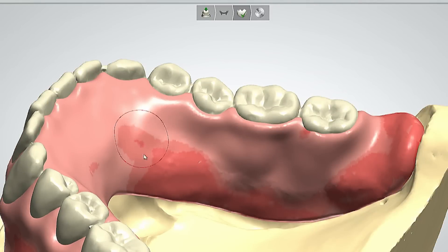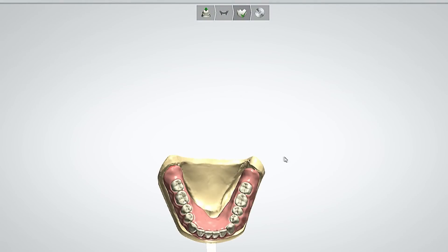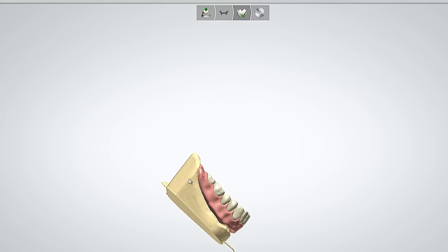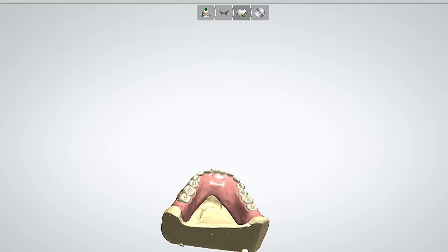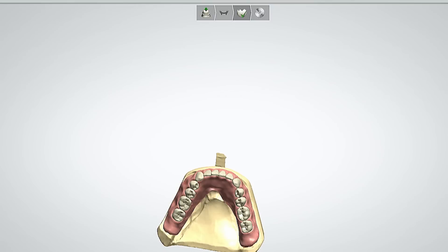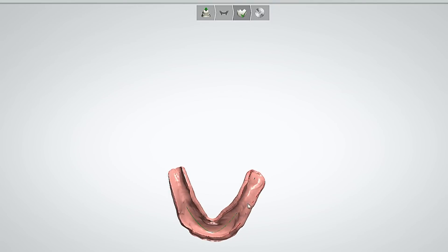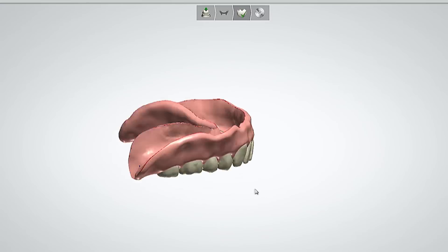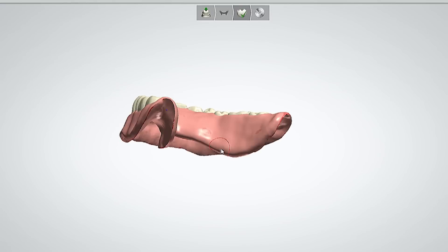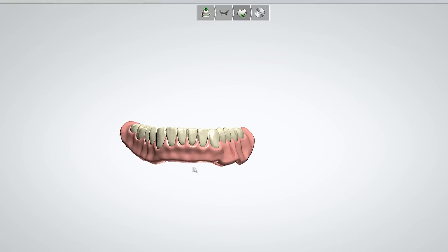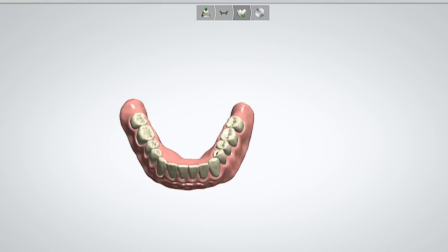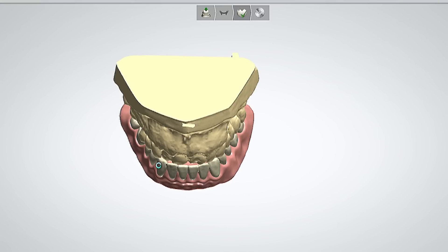Once the festooning is done and the denture teeth are set, the technician can process the denture. There are a couple of different ways of processing. One is to print the denture using a stereolithography printer with two different colors of material — white for the denture teeth and pink for the base. The material hasn't quite caught up with aesthetics yet, but in the near future dentures may be fully printed. Another way is to invest the printed denture and process it like a normal denture. A third way is to mill the denture plate so the base is milled and the teeth are essentially bonded in for final fabrication.